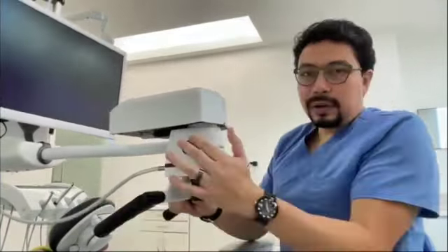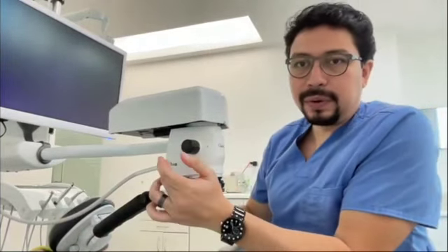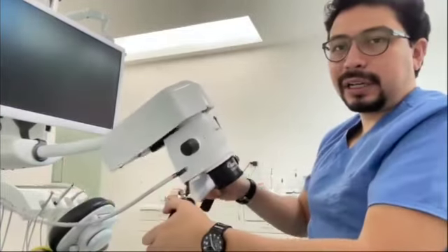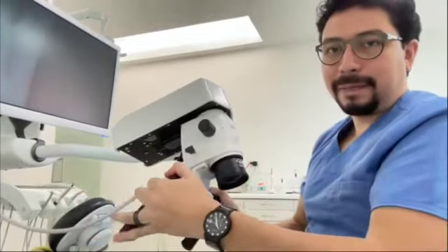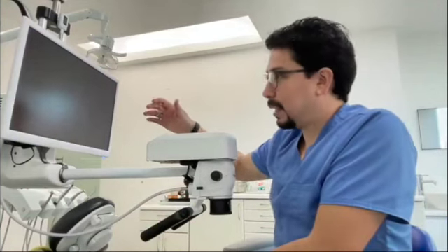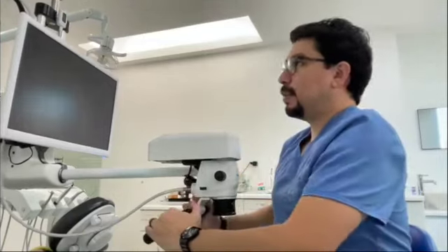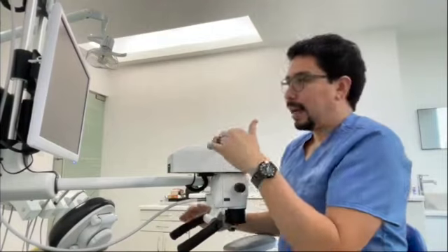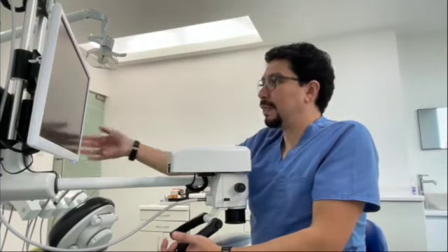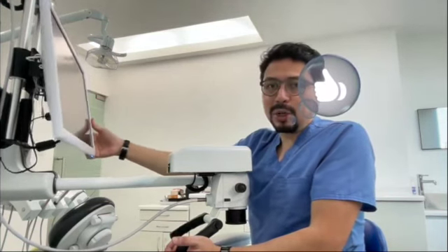For me, this position is the most appropriate because it's not interfering with your movement when you are exchanging instruments with the dental assistant. This is the optical pod, where we change the magnification and select the filters, and you can angulate the optical pod in any direction. Okay? And the screen of the 3D microscope is just in front of me. For example, this is the best angulation and position of the 3D screen for me. I mentioned to you that my vision should hit the center of the screen at a 90-degree angle. But if I need to change the vertical angulation of the screen, you can change it.